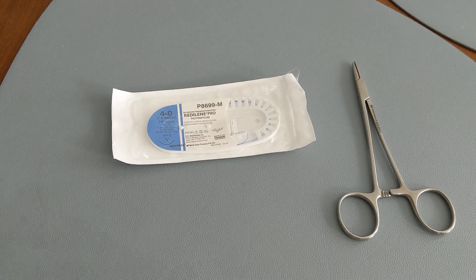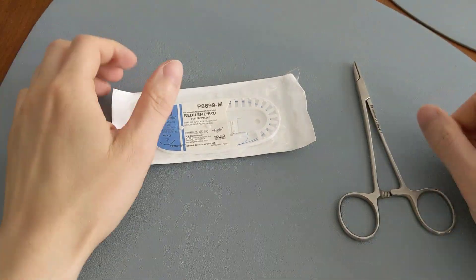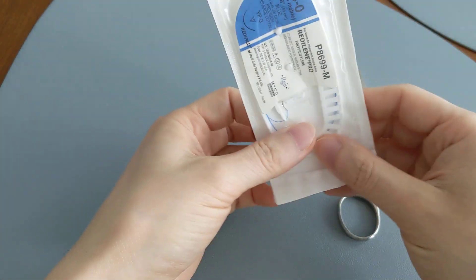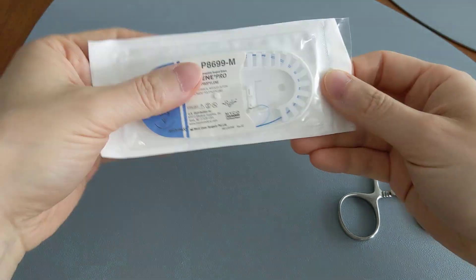Hey, so are blue stitches dissolvable? The best way to answer that is just to do an unboxing right in front of you, and then we can read the label together just so you have definitive proof.